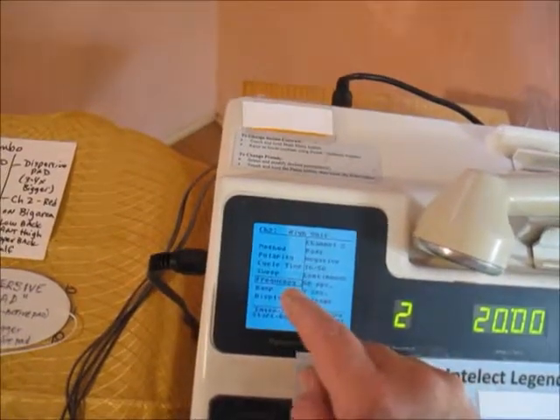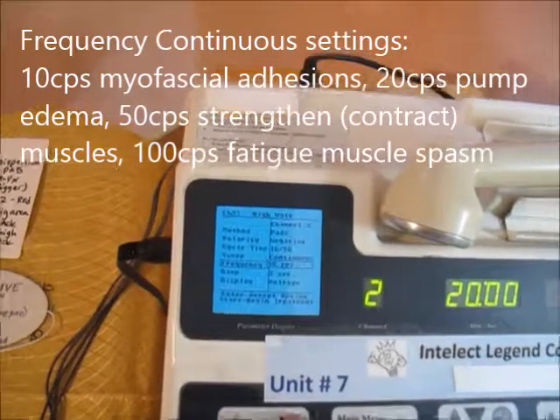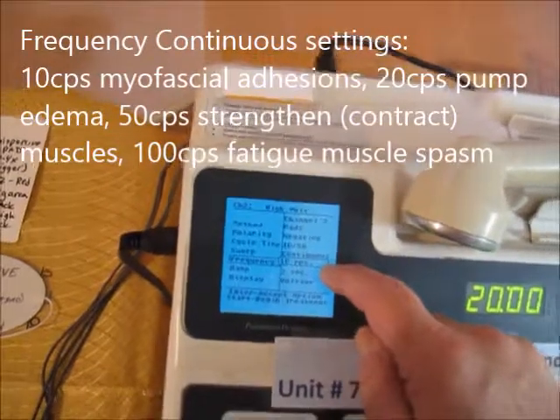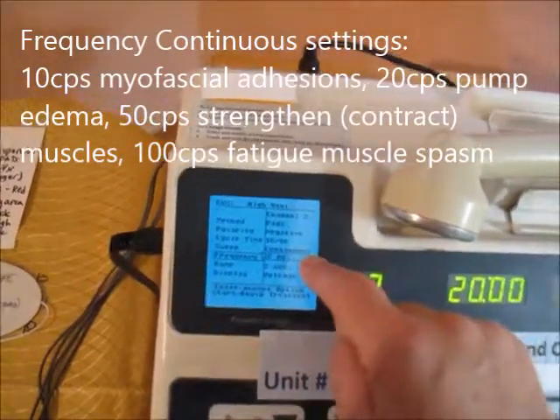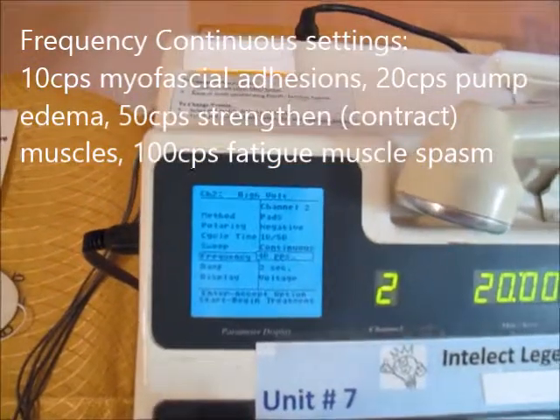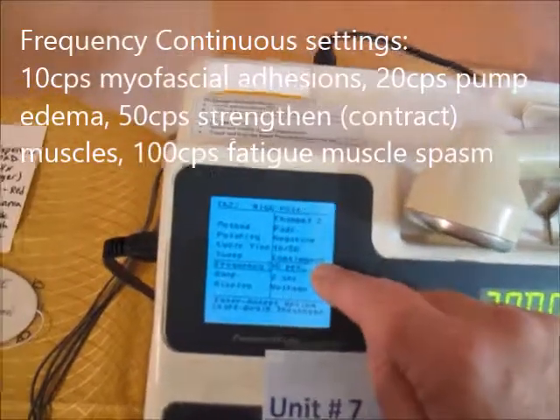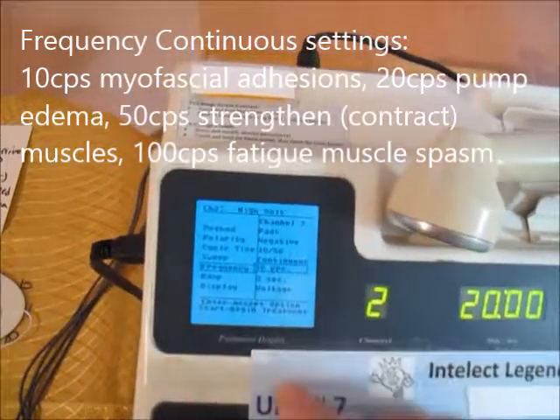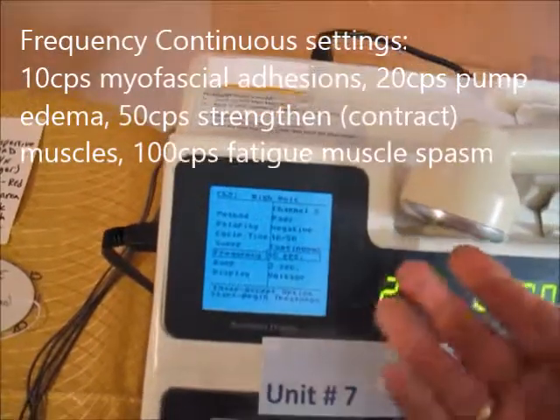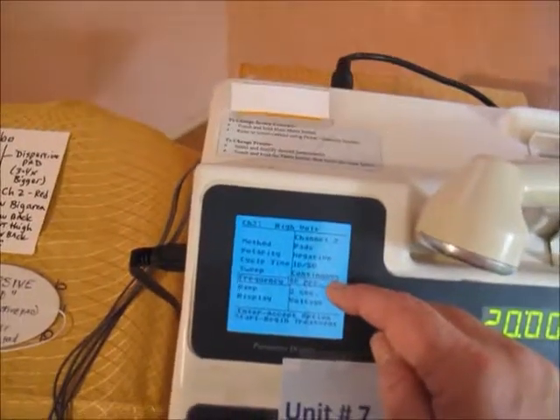I'm going to come down here to frequency. So again, if you hit enter and then you go down arrow, if you set it to 10, you're doing myofascial adhesion breaking. That's called static. You go up to 20, then you're going to be doing pumping edema. That's called intermittent. If you go up to 50, anywhere between 40 and 70, I like 50 because it's a good number. That one's good for contracting the muscle. The last one is if you get past 80 and above, so 80 to 120 is ideal for fatiguing, getting rid of those spasms.